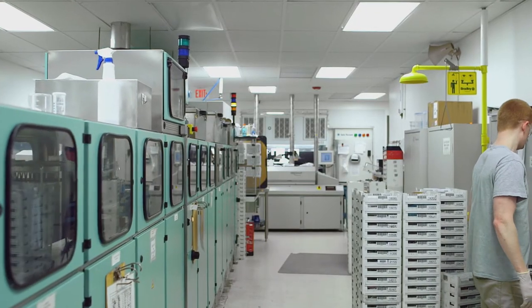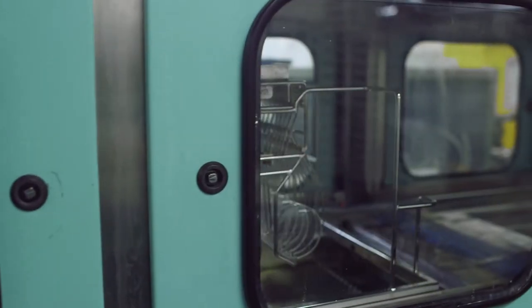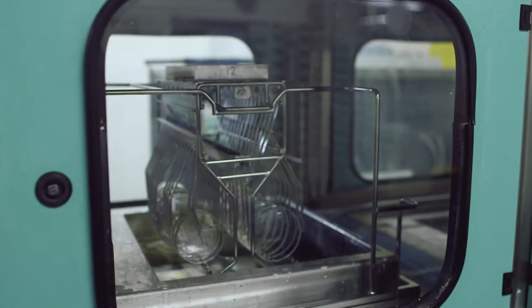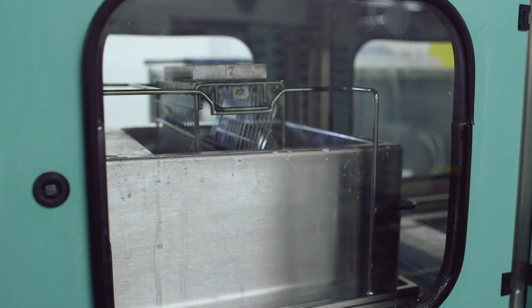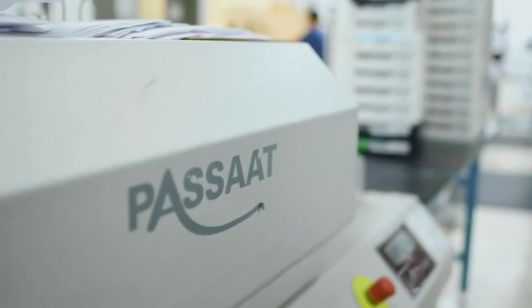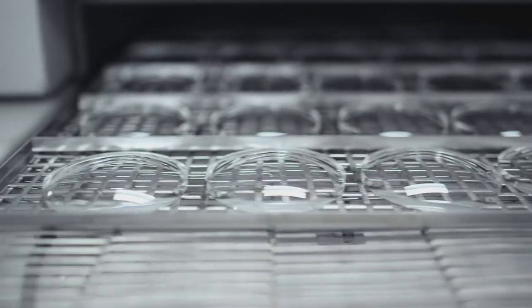Now for the finishing touches. The D645 applies the TD2 anti-scratch base coat to the lens. The lenses are then dried in the Quick Cure Oven, another example of leading-edge technology, drying lenses in only 20 minutes. Other drying methods can take up to 4 hours.